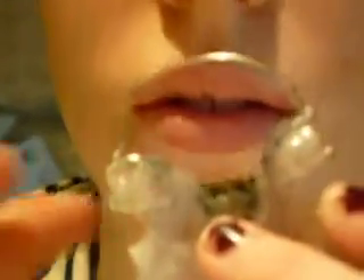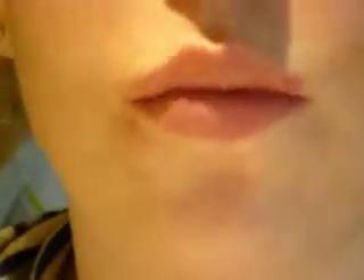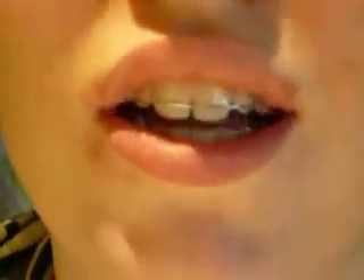Now what does that let you do? It helps me — it lets me talk better. Well, you're talking really good. So you can wear this at school then? Yeah. And you think your jaw doesn't bother you at school either? No, it doesn't. Does anybody make you self-conscious because of this? No. Okay.